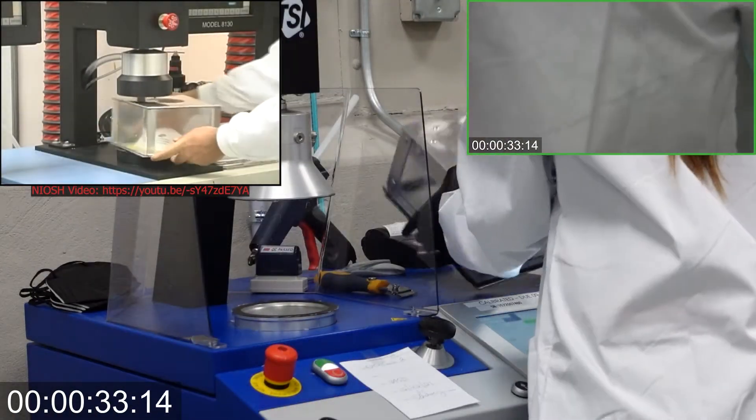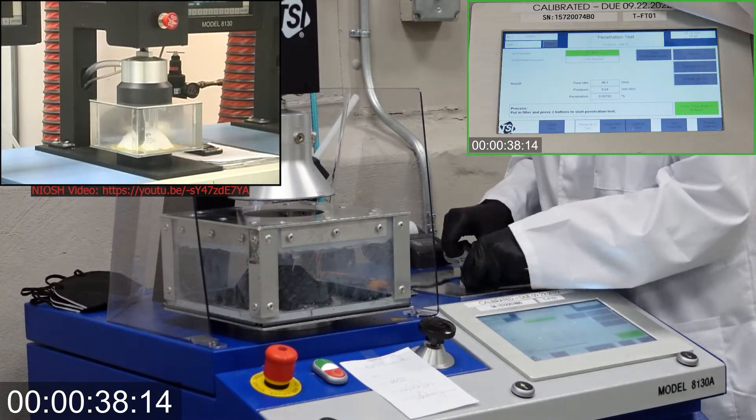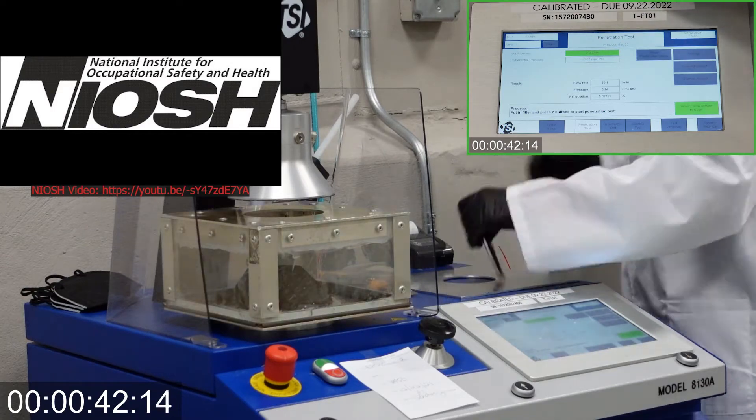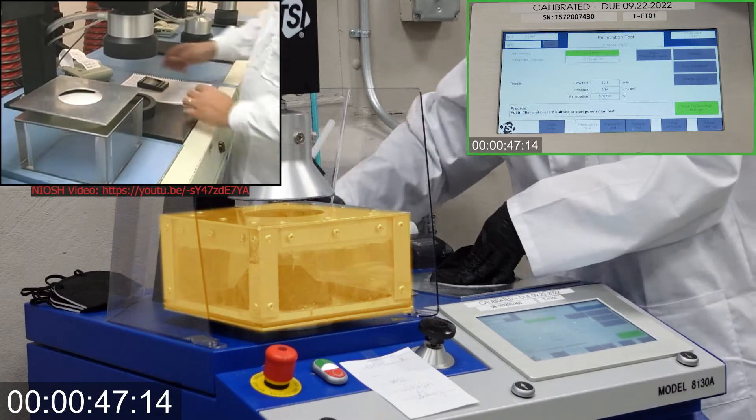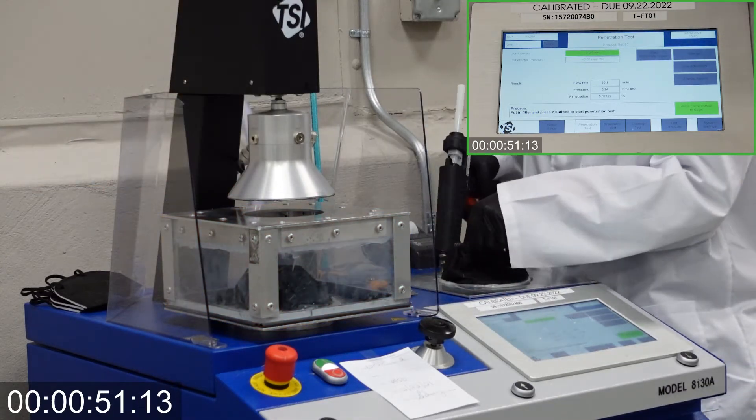Next, the box is put to the TSI filter holder for testing. Our testing method is inspired by NIOSH. A testing box with frame and plate were manufactured for the purpose of testing complete masks and respirators in-house as part of our standard quality control procedure.